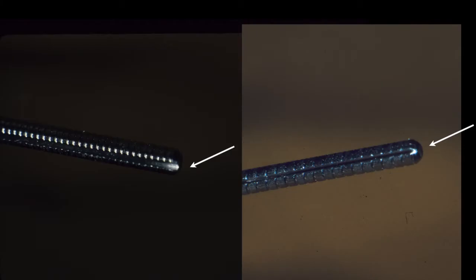These are paraposts circa 1988. In the manufacturer, I think they cut the thread, mill the vent, stamp the head, and then cut the rod to length. Unfortunately, the cutting process burnishes the metal over the vent. Here you see the end view as manufactured on the right, and on the left after cutting the vent open again. On the right is as manufactured. On the left is after reopening the vent with a sharpened disc.